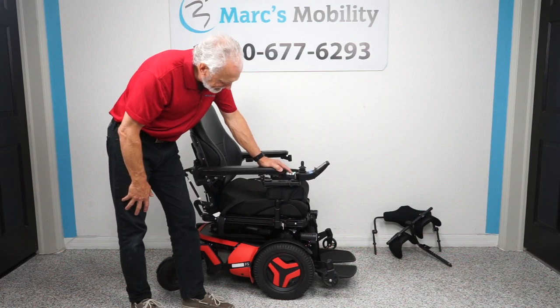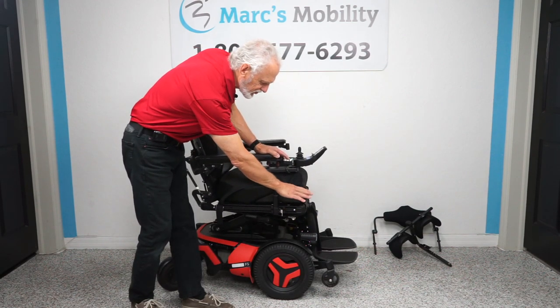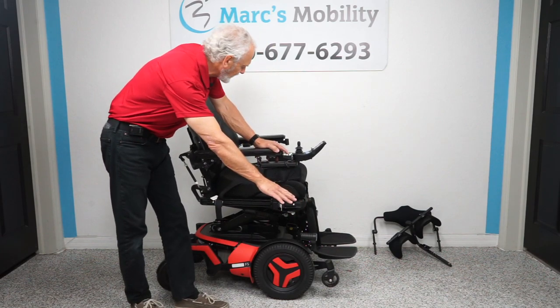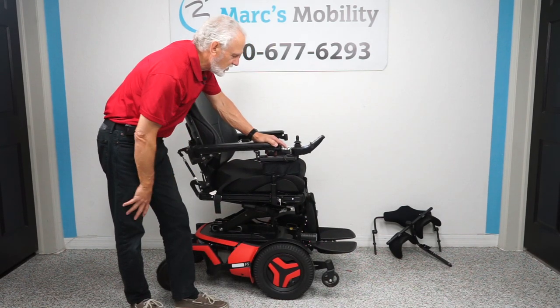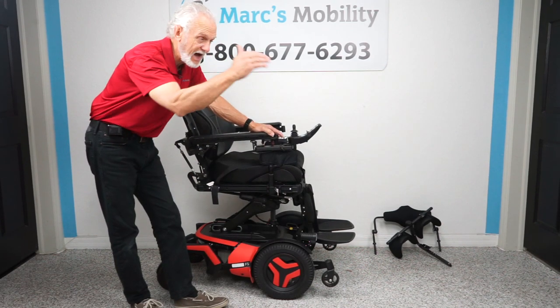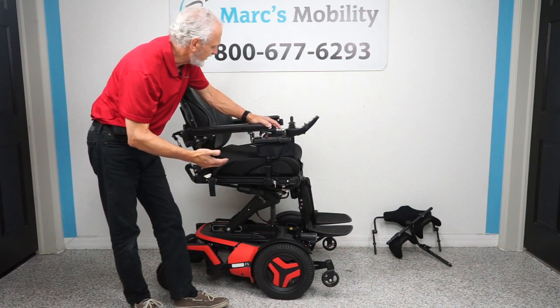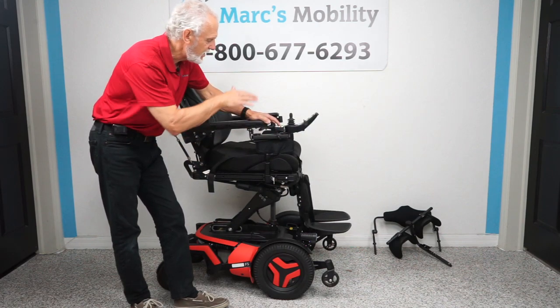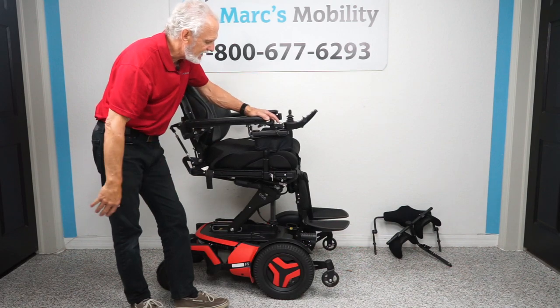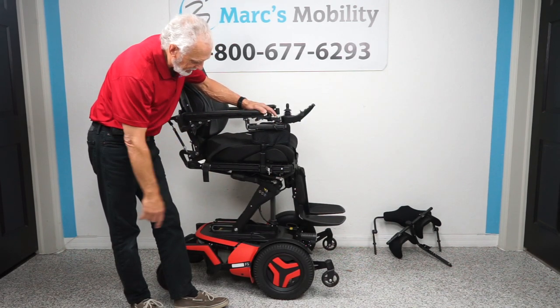When you start, you'll be about 22 inches from the ground. Add the 14 inches and you'll be at 36 inches — definitely eye level with people. The nice thing is you can go to the movie theater or walk with someone at eye level. You can also drive this chair with the seat all the way up.